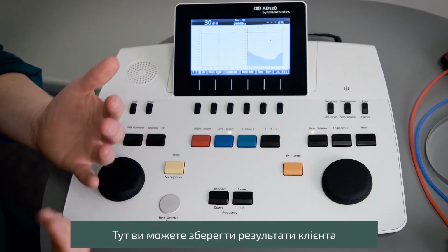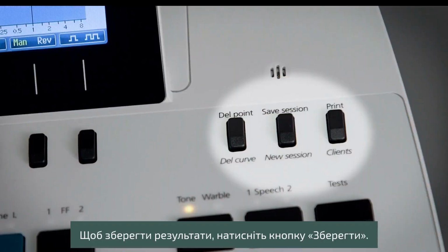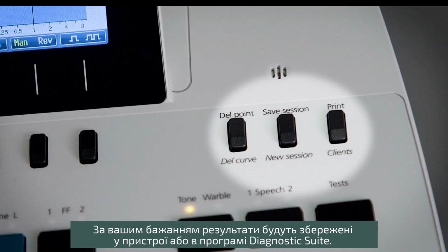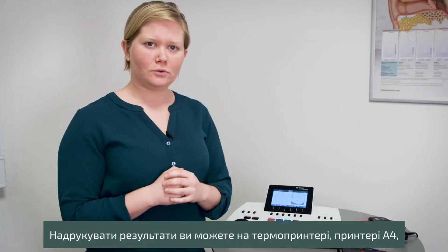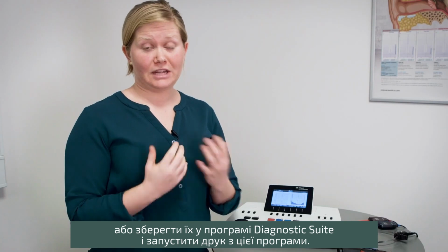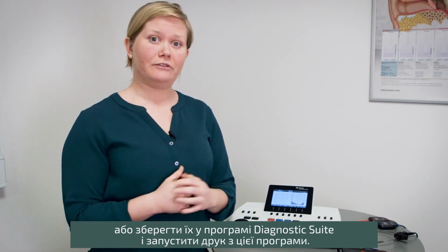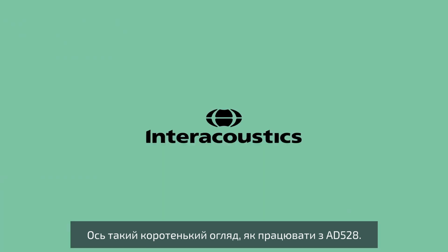So you can save your results of the client, you can print the results. Saving is done by pressing save, where you save to the device or to diagnostic suite if you want that, or you can print your results by a thermal printer, an A4 printer, or by saving it to diagnostic suite and printing from there. So that is a short tour on how to get started using the AD528.